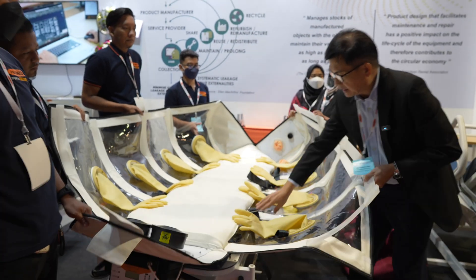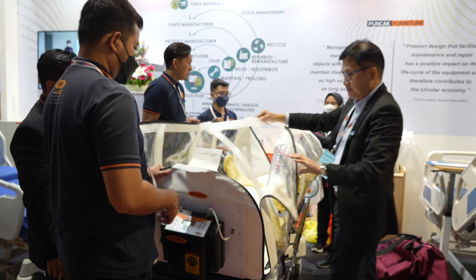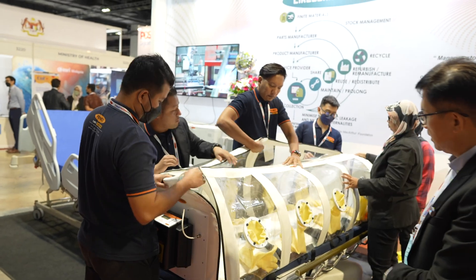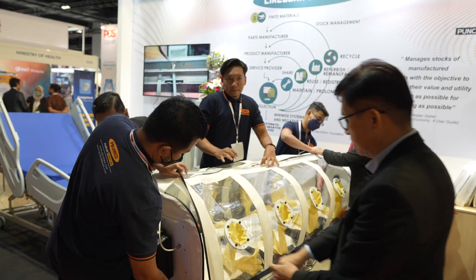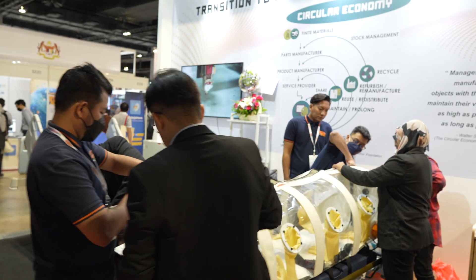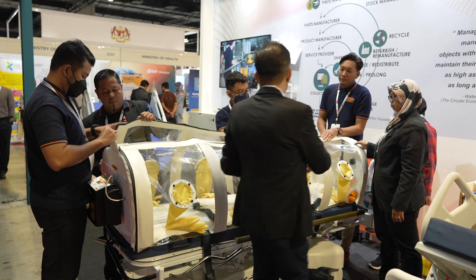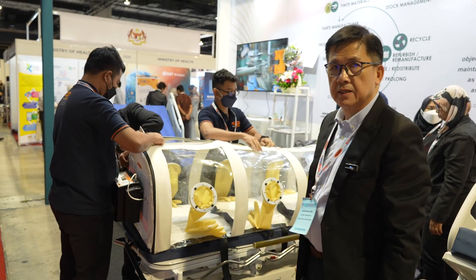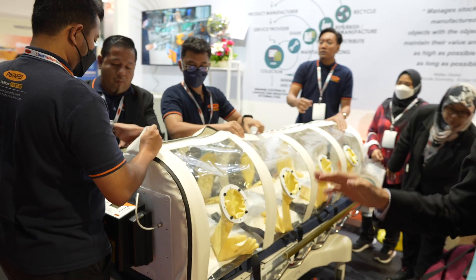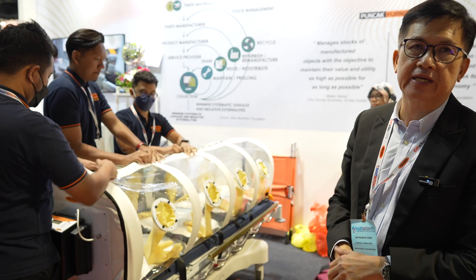Once the patient goes in, we can also strap the patient in. The patient is safely inside — we just zip it up. Once it is zipped up, the patient can be safely transported from one area to another without contamination of the surrounding environment.